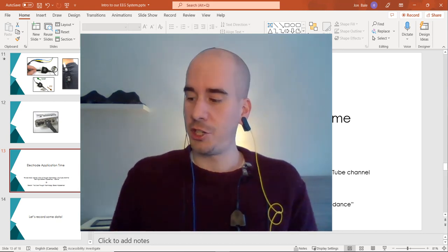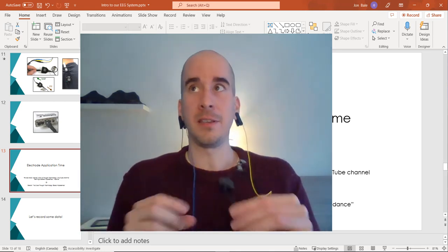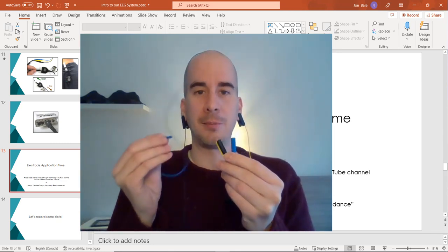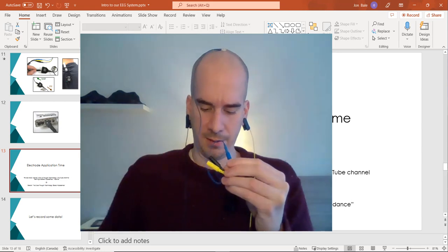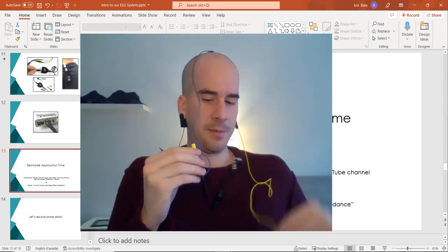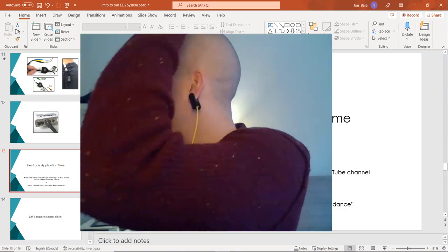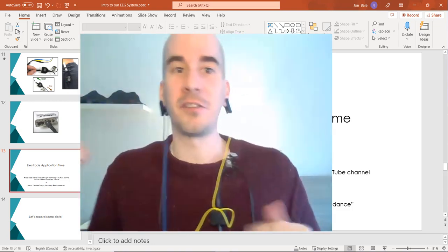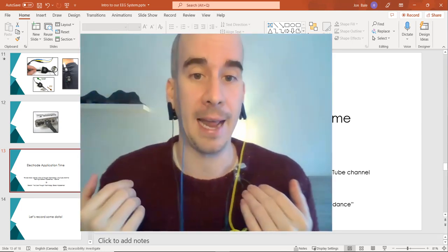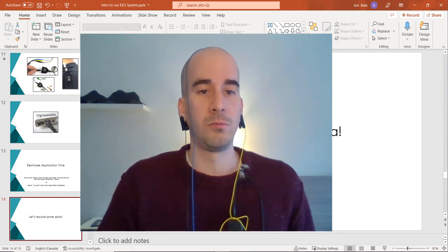Now I have the EEG sensor with the three colored DIN cables and I'm going to plug in the appropriately colored cables. Blue goes to blue — a nice little click tells me I pushed it deep enough. Black to black. Yellow to yellow. Normally all these cables would be oriented to come off the back of the head so they don't interfere with the individual's peripheral vision during assessment or training. But for your benefit, you can see this right now. Now it is time for us to record some data, so let's go look at some software.